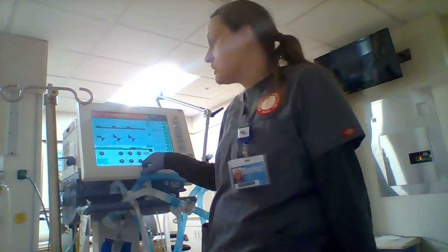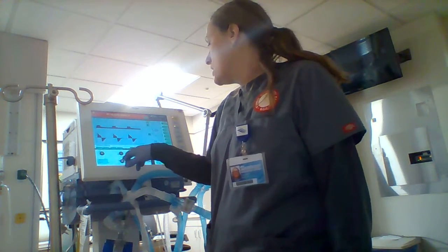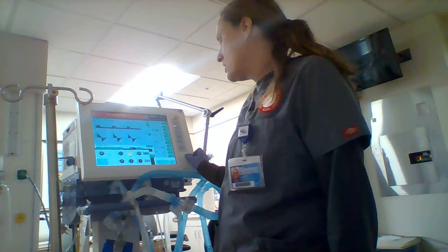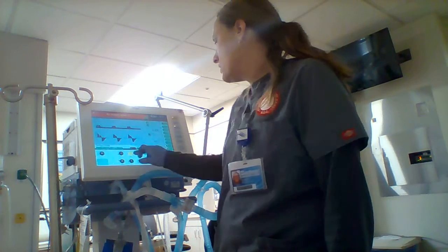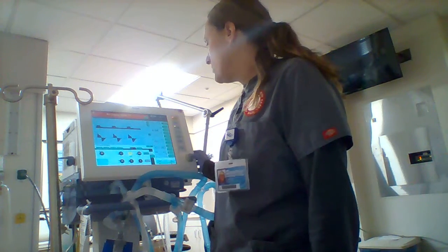It's not really plus. PEEP is 8. Inspiratory pressure is 20. Frequency is 14. Let's make it 12. Yeah, dang it. I did it wrong. 12. Perfect.